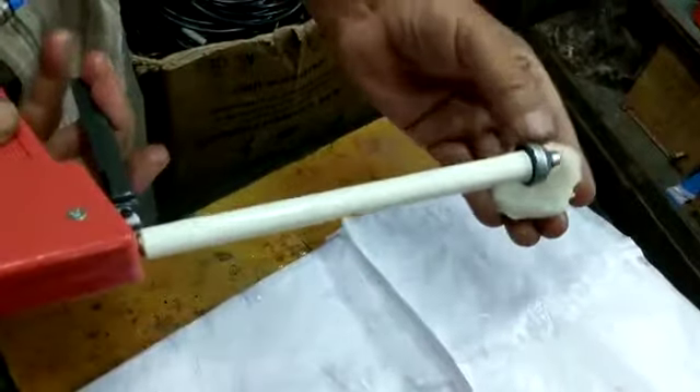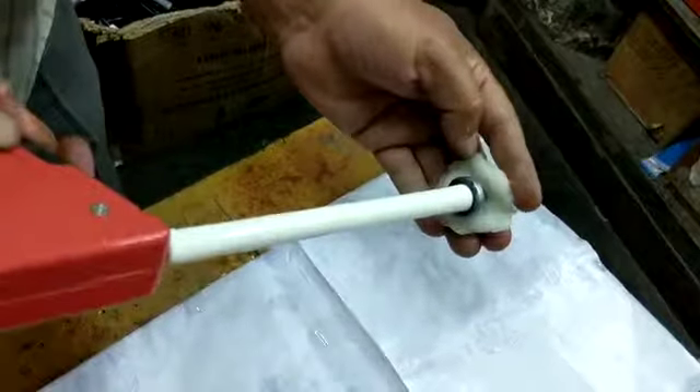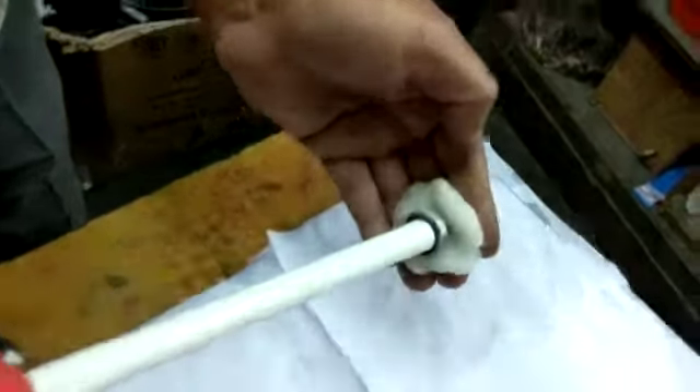Using it with the cryo tip, I am placing it on the wet cotton. Now I am starting this — see this ice formation in this area.